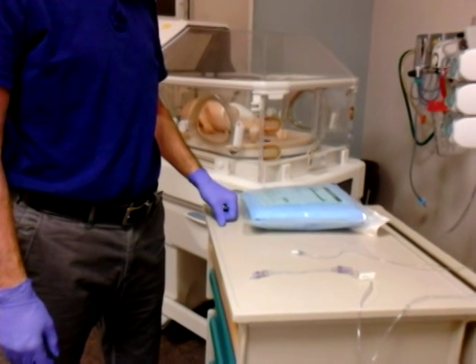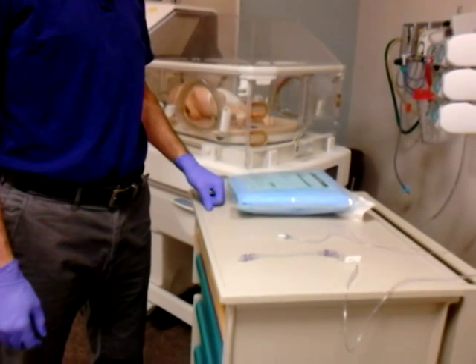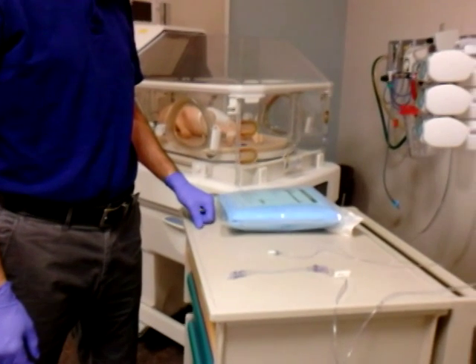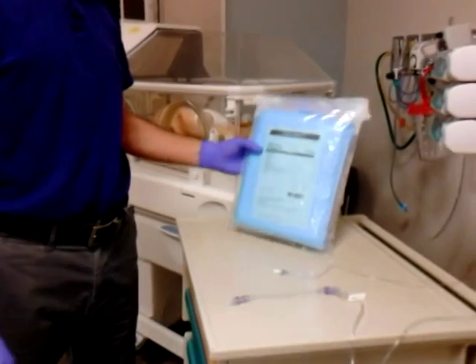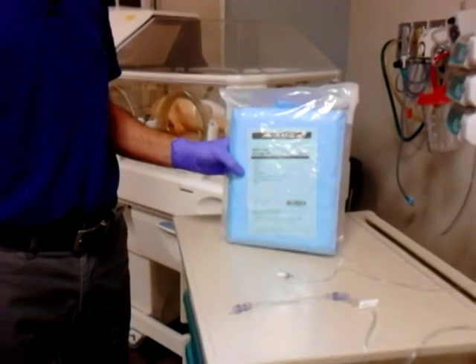This video will show our new sterile line change kit incorporating our large volume IV tubing. This is the new NICU line change kit. You want to grab one of those to do this.